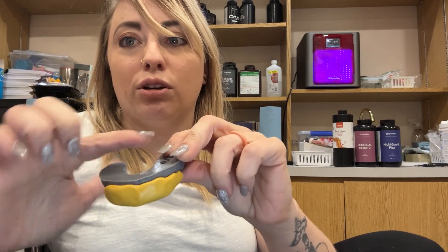We want our patients to test-drive the design. We've already printed this model, so just get a putty and do a putty impression right over top of it. Don't go too far down, because this putty has to go in their mouth — don't put it over the edge. Make a nice putty. You can even mark the midline, which shows you how to put it right back in their mouth. Now you've prepped the teeth in the operatory and you want to make some temporaries. When it's a huge cosmetic case, we don't do them all the same day — we put temporaries on them and have them come back in 2 weeks, which is not long compared to a lab. Sometimes for a cosmetic case it can take a month.